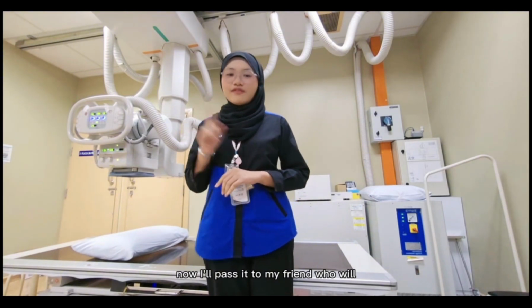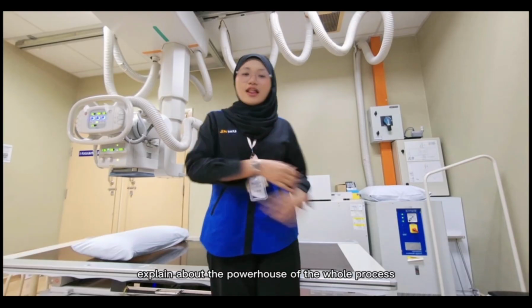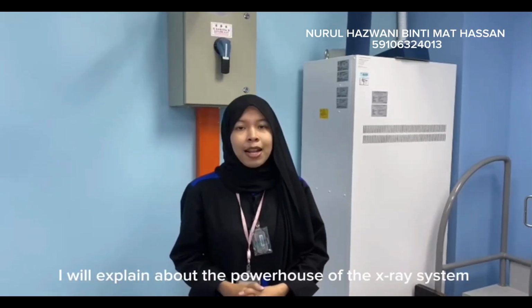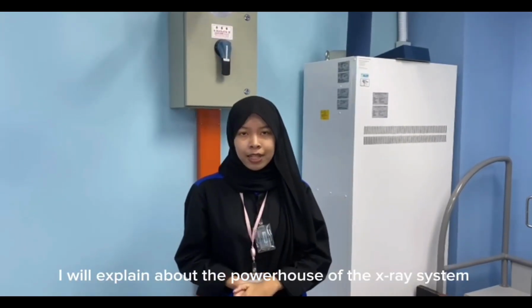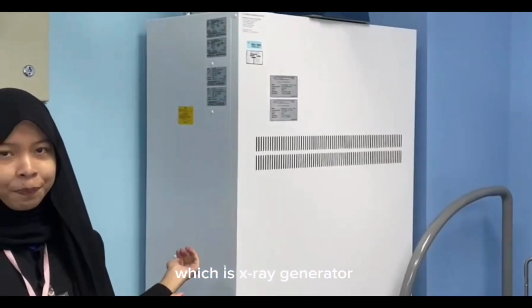Now, I'll pass to my friend who will explain about the powerhouse of the whole process, the generator. Hello, my name is Nur Hassan. I will explain about the powerhouse of the X-ray system, which is the X-ray generator.